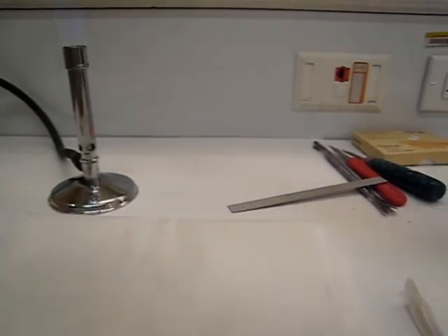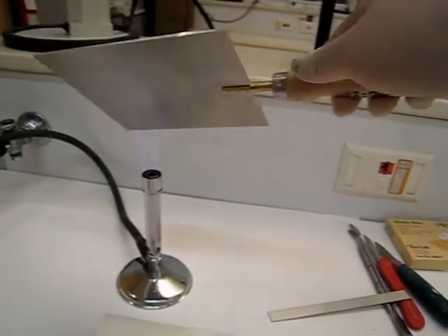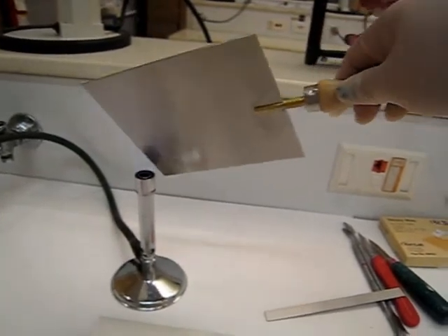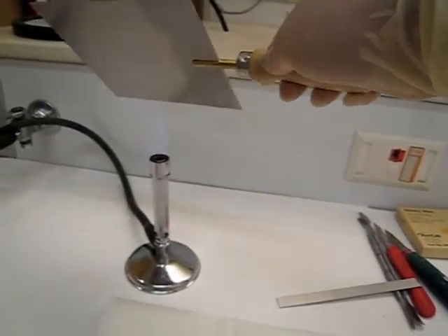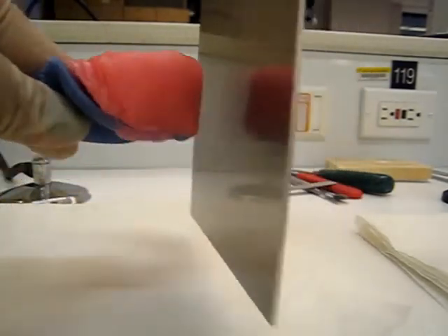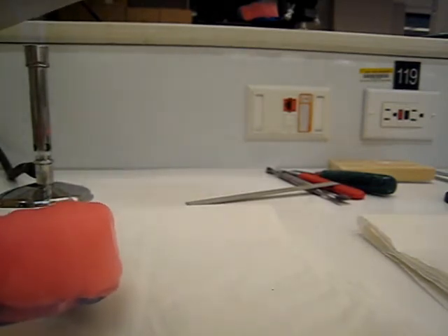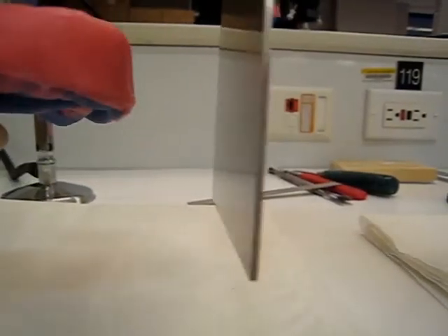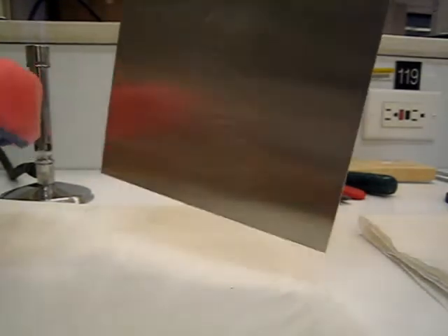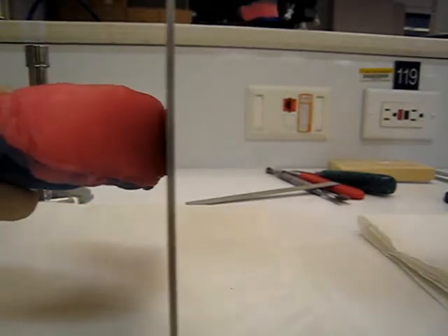First thing I like doing is heating my hot plate - I'll show you how. If I'm going to melt a lot of wax, I heat both sides, heat it evenly so it'll melt much easier. Just over the flame, turn it, heat both sides. From canine to canine it should be pretty much flat. Heat up your hot plate nice and hot - you want it to melt the wax right off. Use the bottom of the rim and take it down perpendicular. Hold it with the handle up top so you don't get wax on your hands and burn yourself.